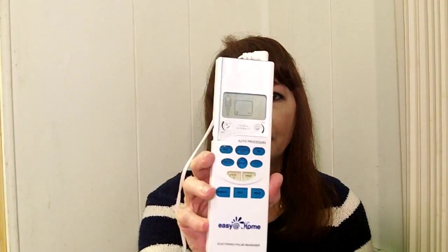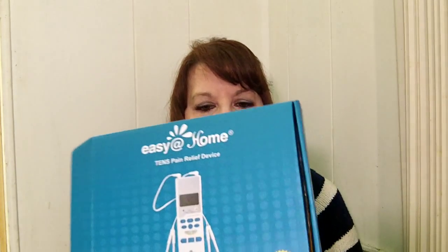You can use it one to two times a day. With the chillier weather, I've been doing it twice a day and it's really effective — so much more effective than anything else I was using. This is the kind of treatment you might get at a doctor's office that costs a fortune, but this unit is very nicely priced. Check the blog review for all the information you need on how to get yours.